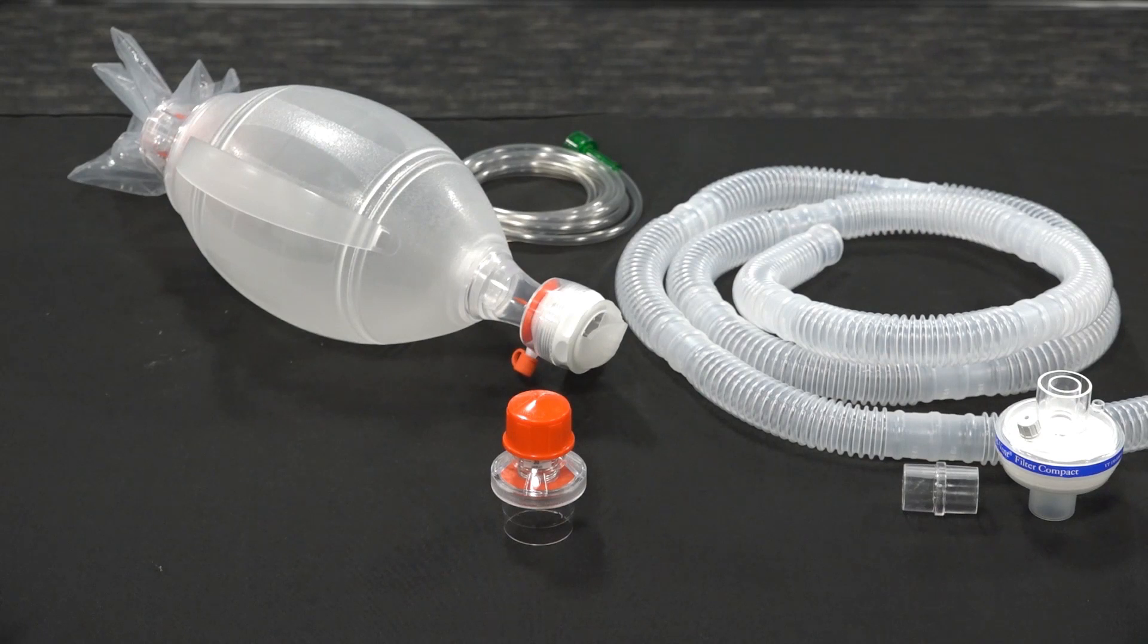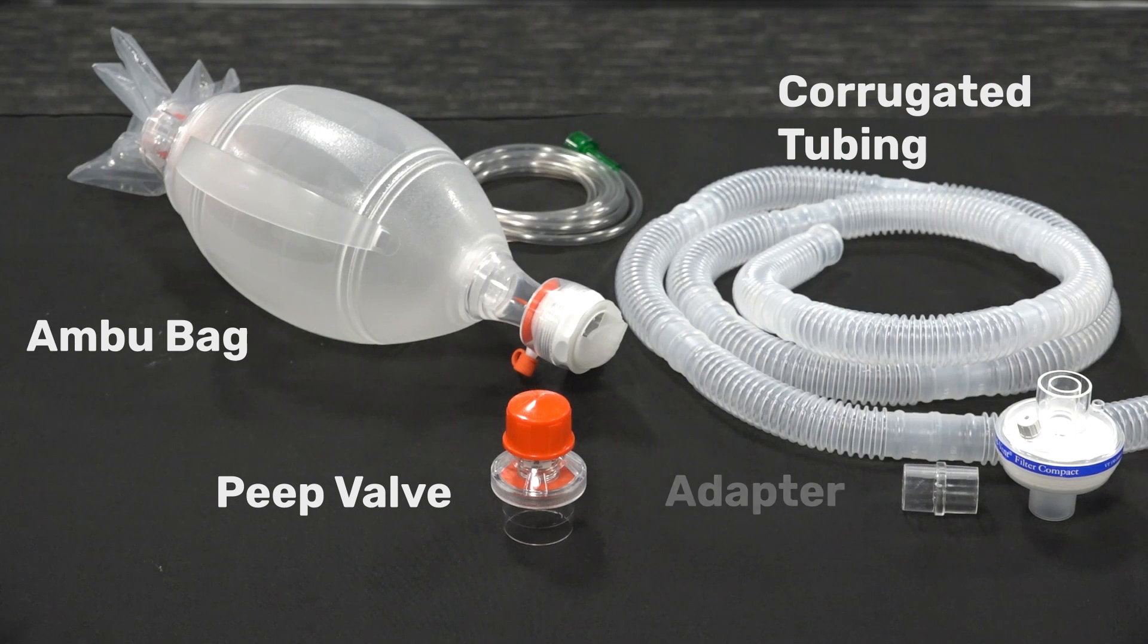You will need a manual resuscitator bag such as an Ambu bag, a peep valve, corrugated tubing, an adapter, and a filter.